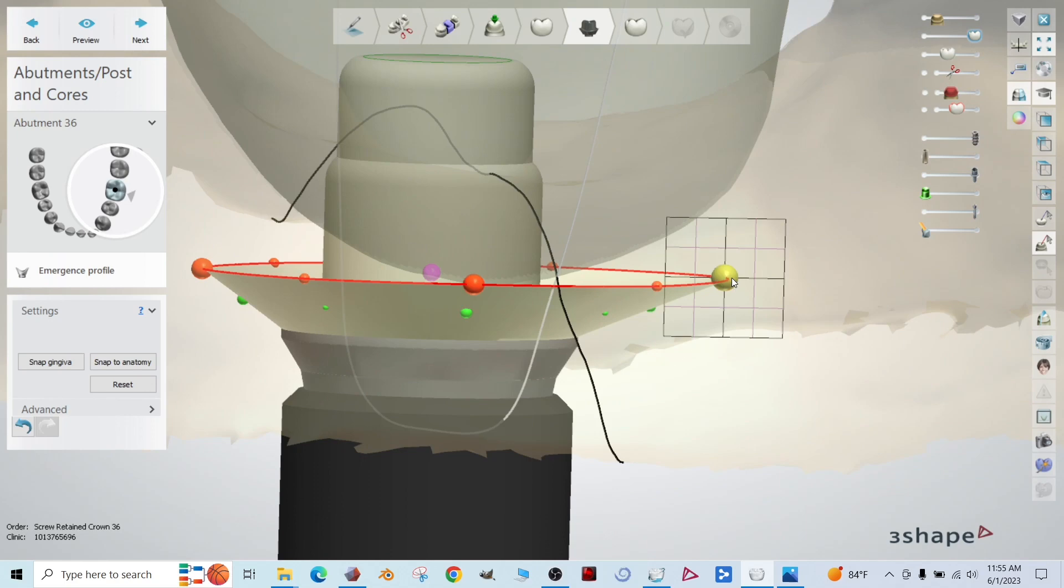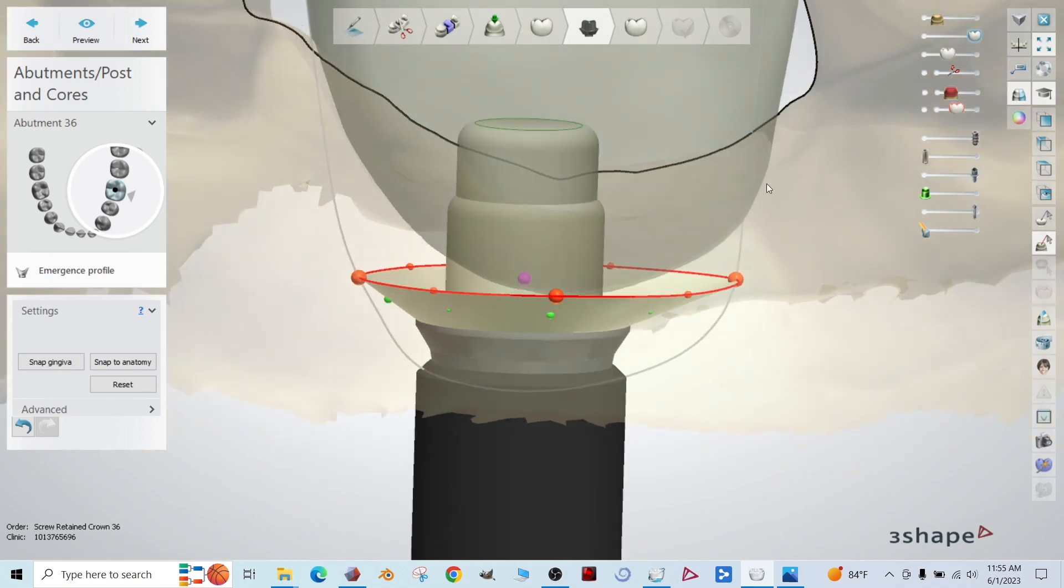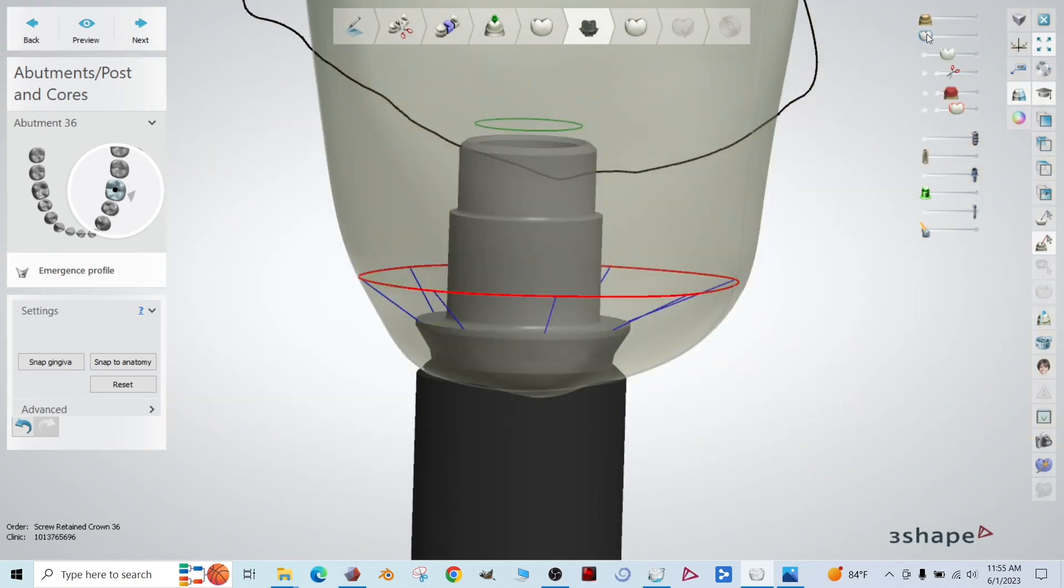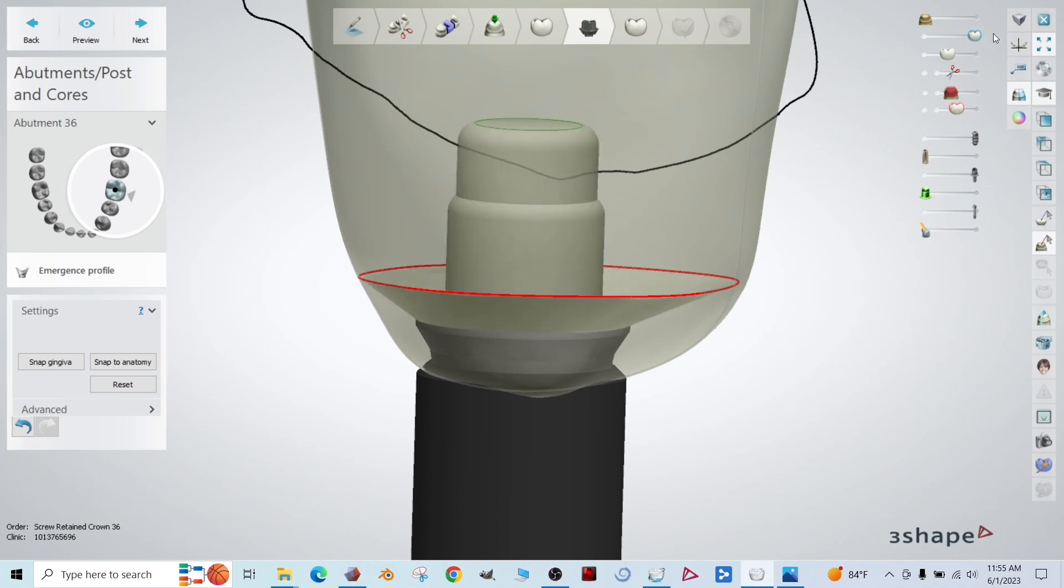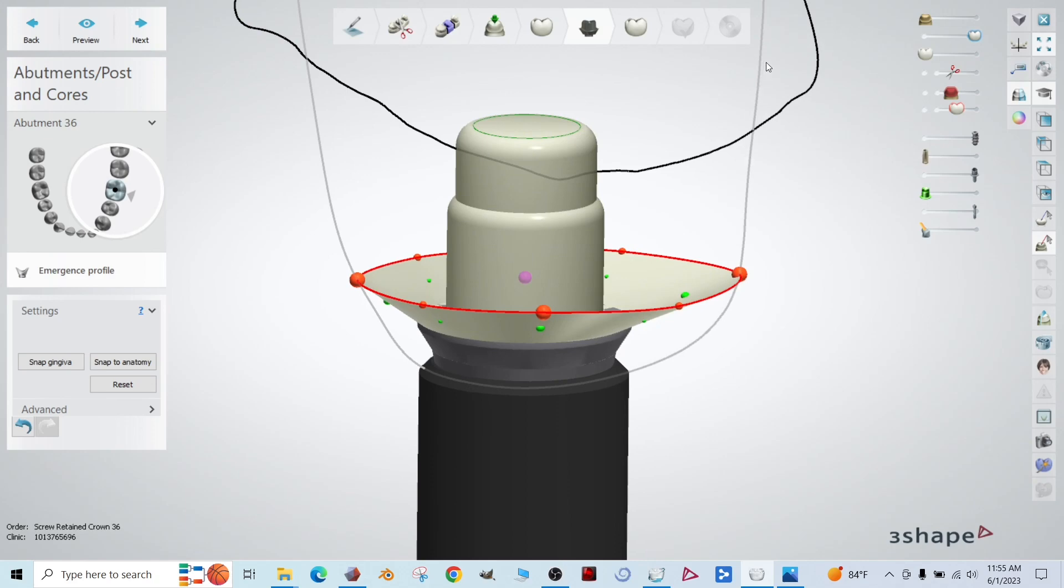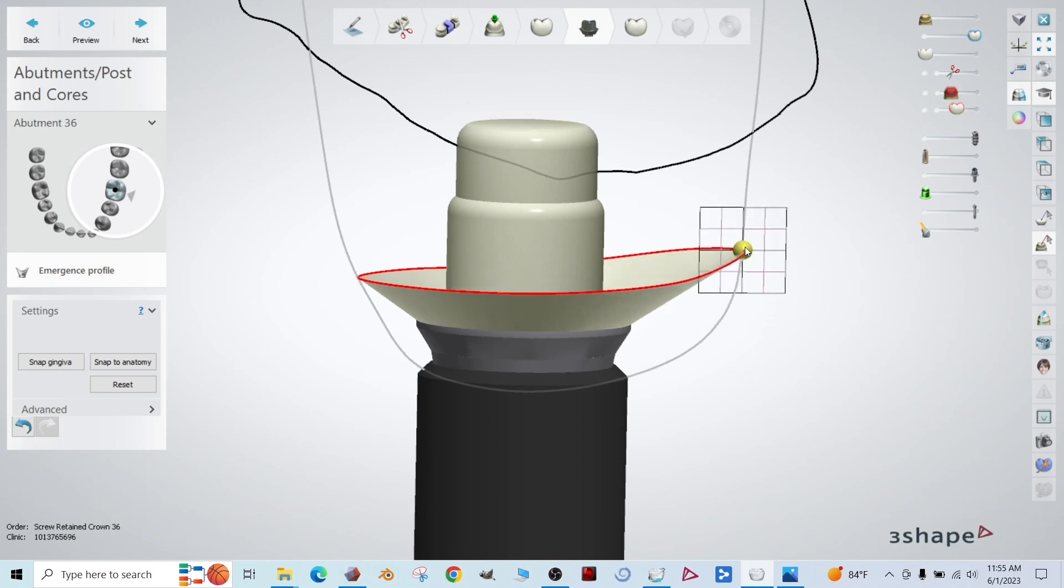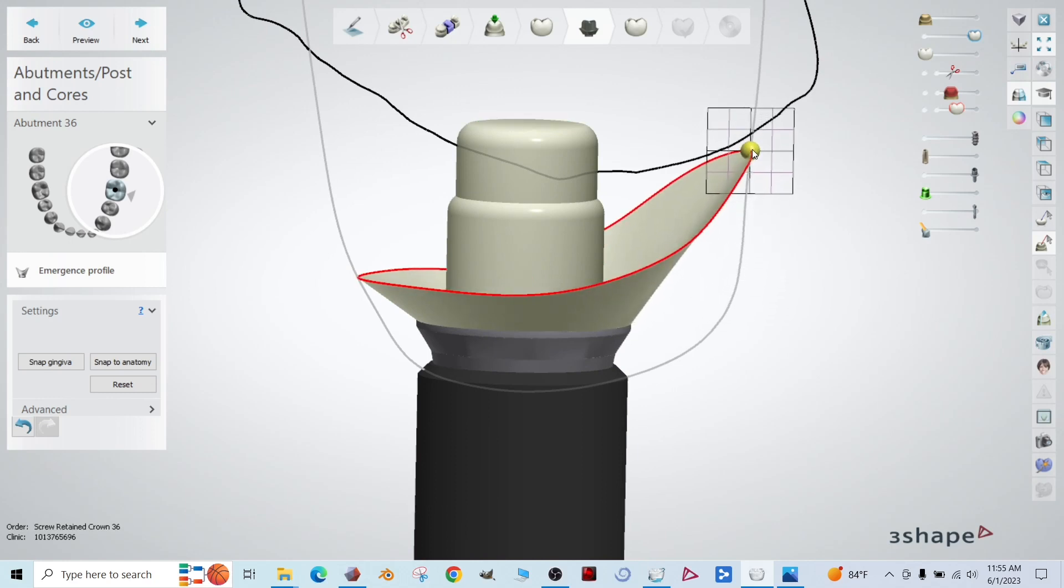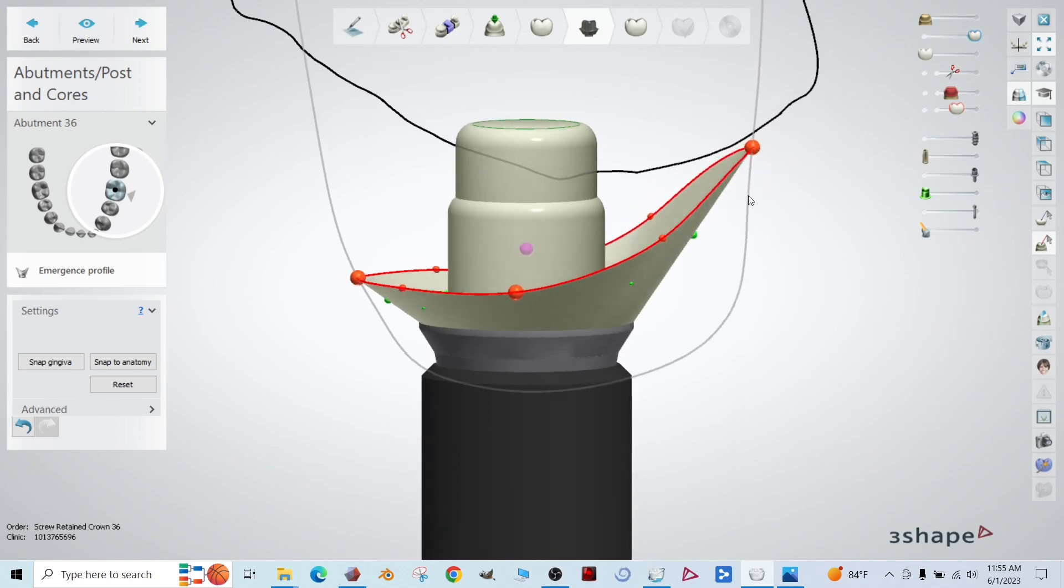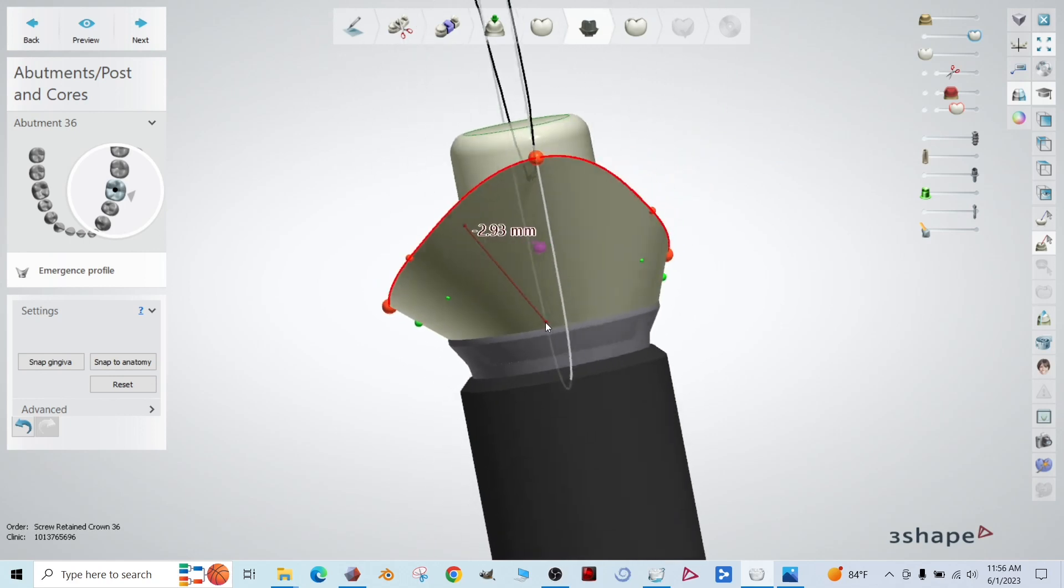And now we're going to grab each of these big orange dots. And let me just get rid of everything here so you can see the lines. We want that. So there's this black line up here and it intersects with the gray line. So the black line is our intraoral scan. So that's the tissue. And then the gray lines are waxed up crown. So we want to bring this dot just below where those lines meet.